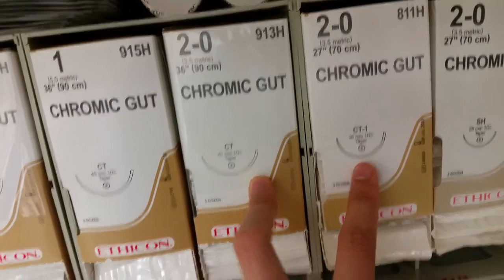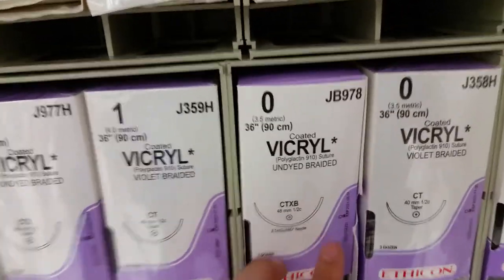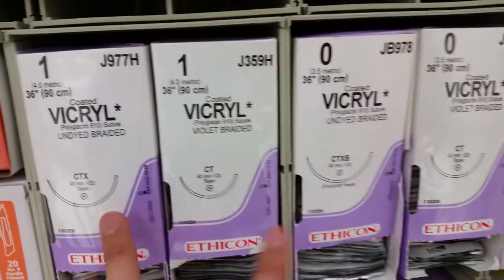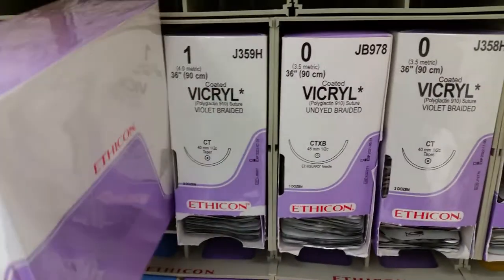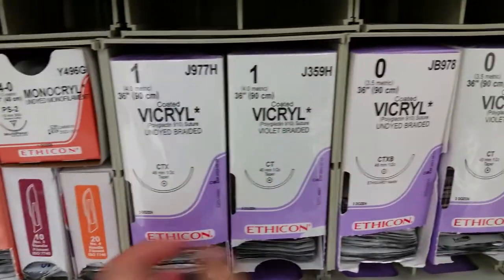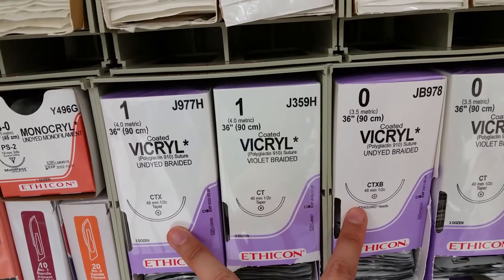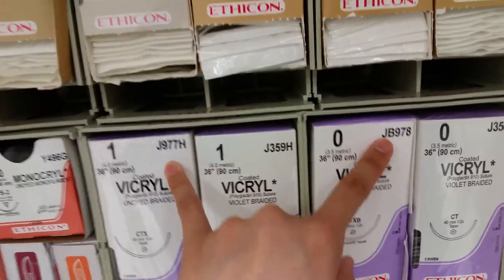Then there's another group called CTXB and CTX. CTXB is this one — look at the difference in size between the two. CTX is right here. If you put them side by side it's kind of hard to see the difference, but if you group them together you'll know they're in the same category.